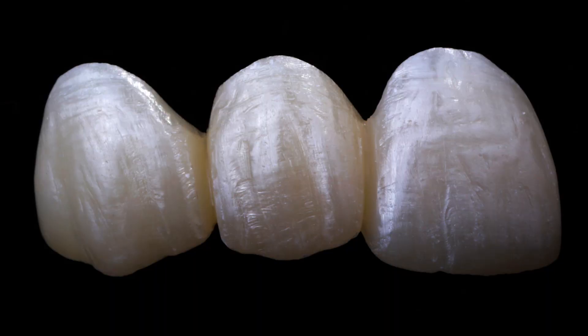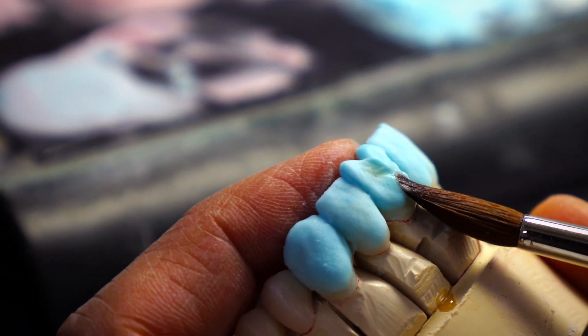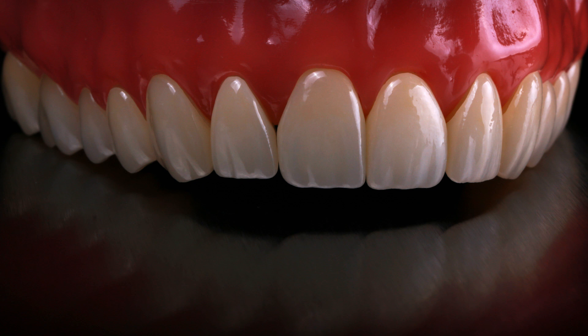When a ceramist makes a tooth that is going to look natural, it's trying to mimic a tooth. The restoration is going to have layers like a dentin layer and an enamel layer and some incisal translucency — it's not just going to be one block of opaque color. The dentist and the lab doing it this way separate themselves from the run-of-the-mill factory production dental practice which are just making opaque blocks of ceramic.